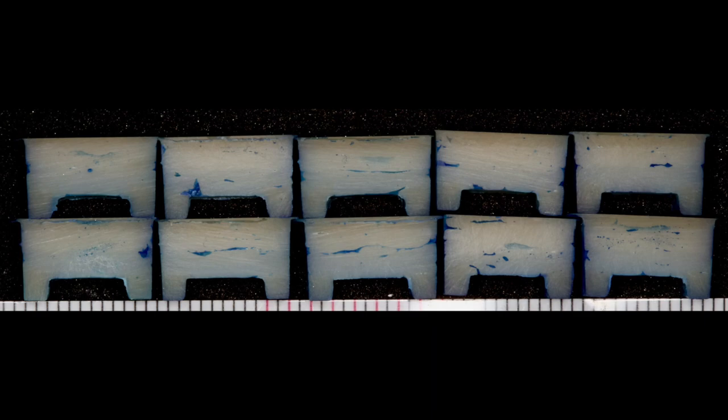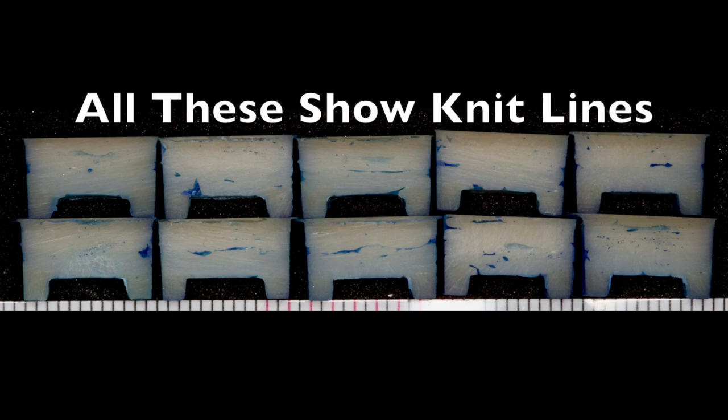Here we can see an image of many restorations that have been incrementally placed and light cured. These were not placed using Tetric Prime, but instead they were placed with a different composite.